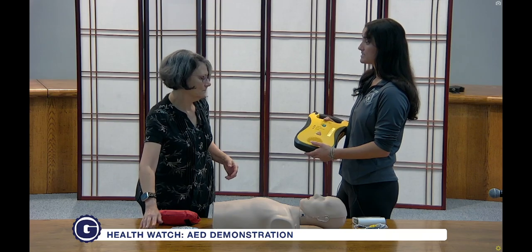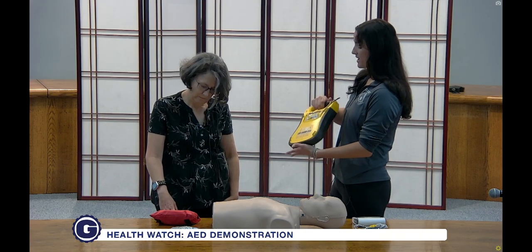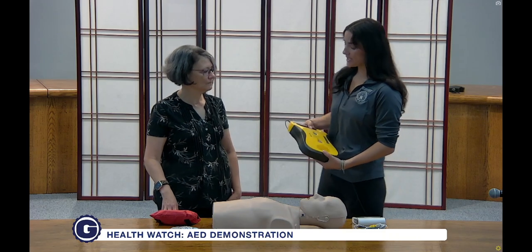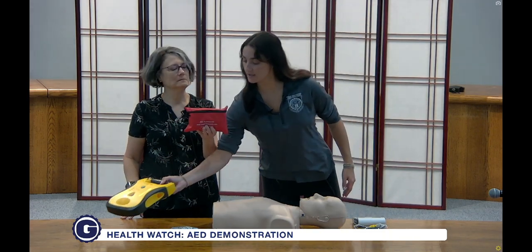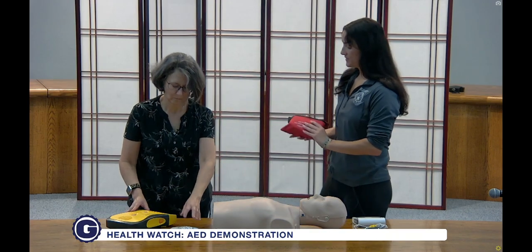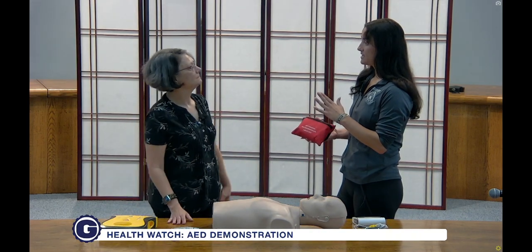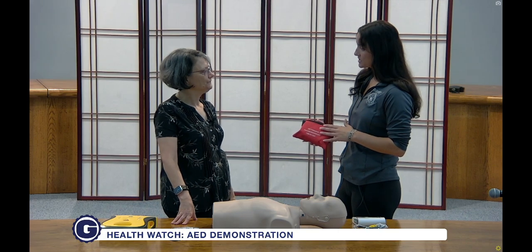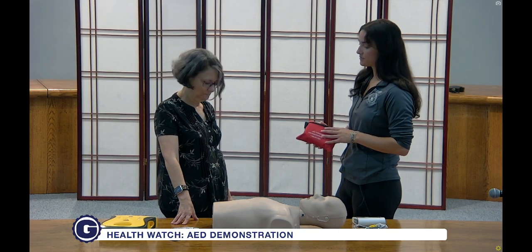It's going to be nice and loud as soon as you turn it on. And then we have pads in the back. Located inside that casing, we also have this kit right here that's going to have gloves, scissors, and anything else that you may need to use during these kinds of emergencies.